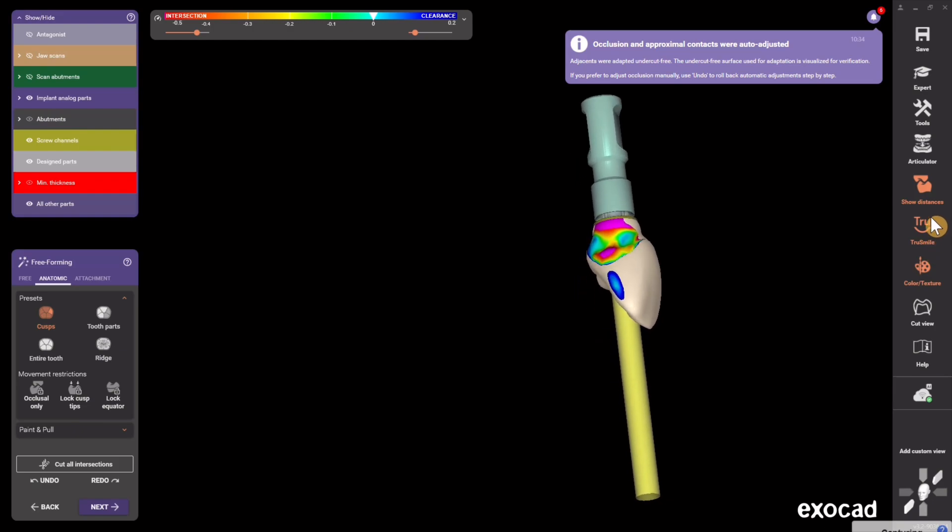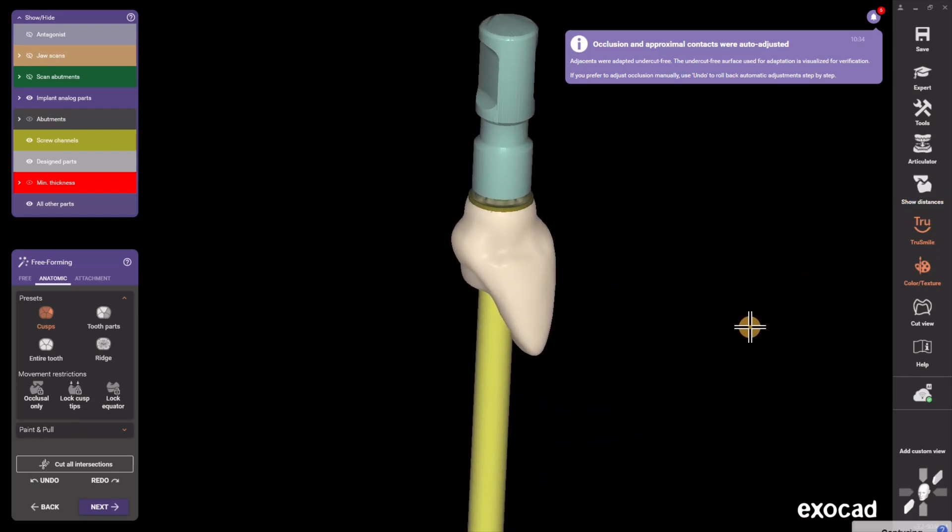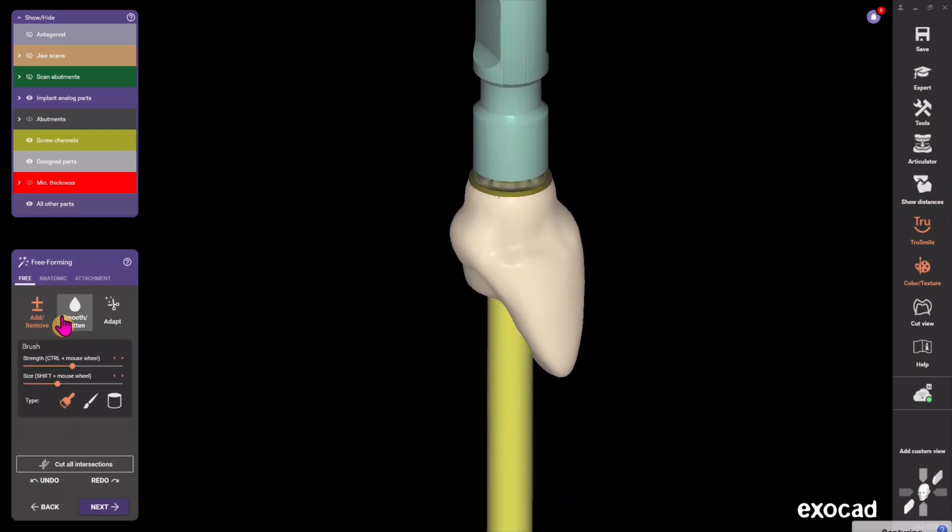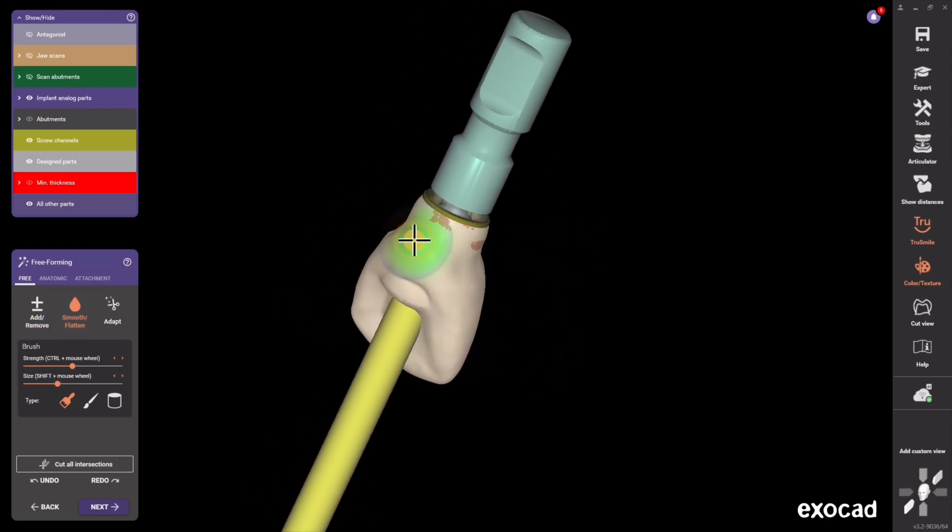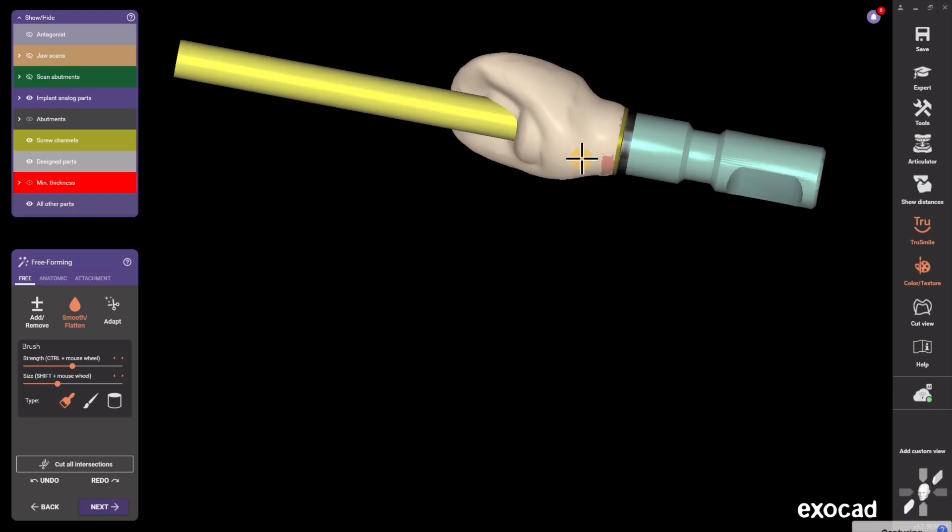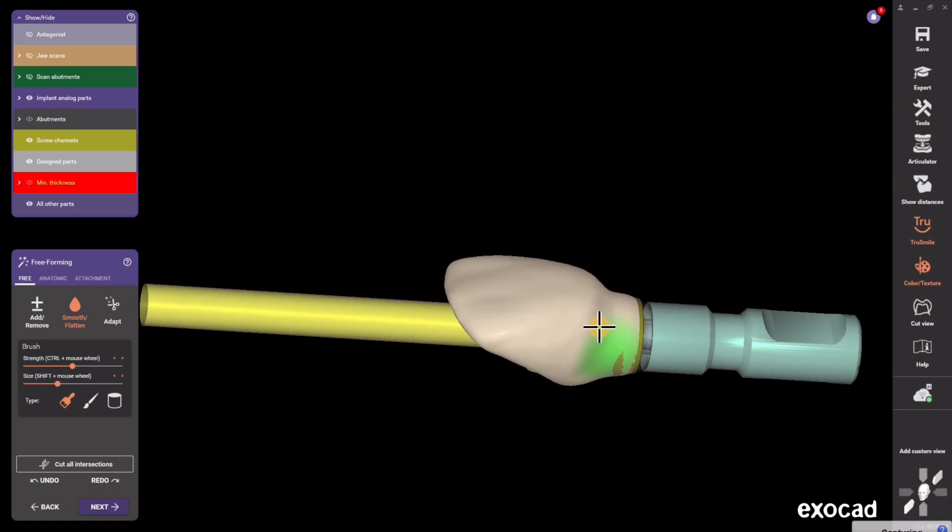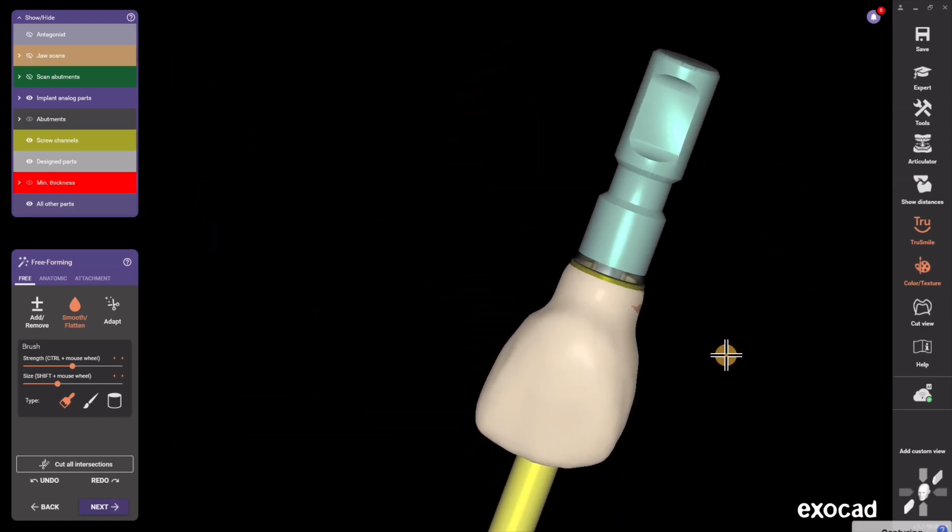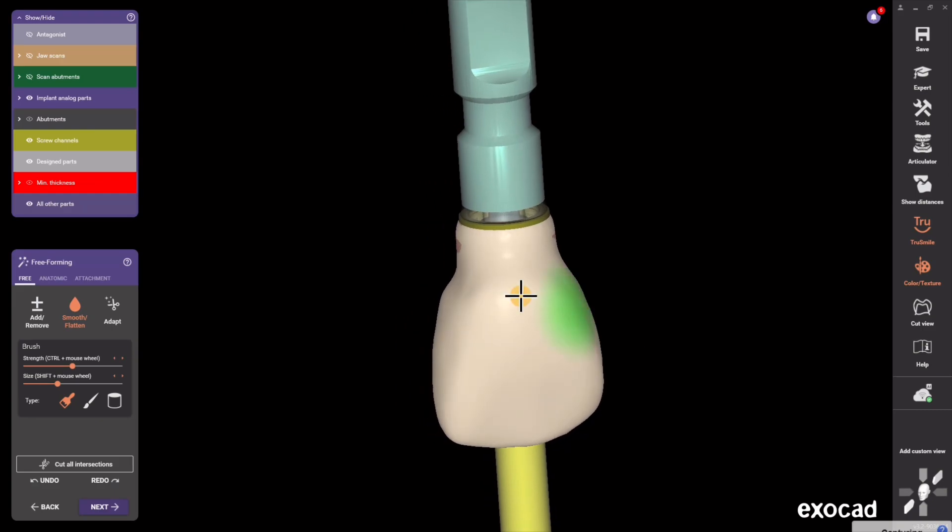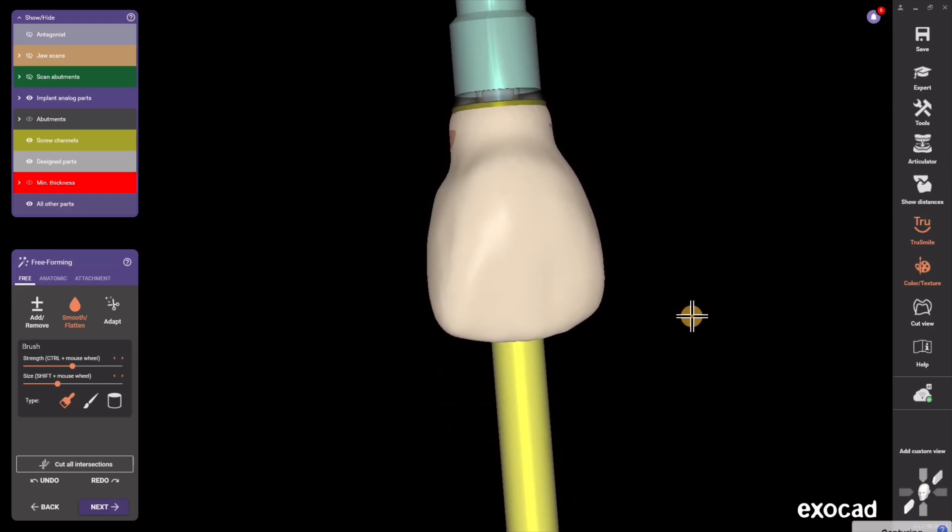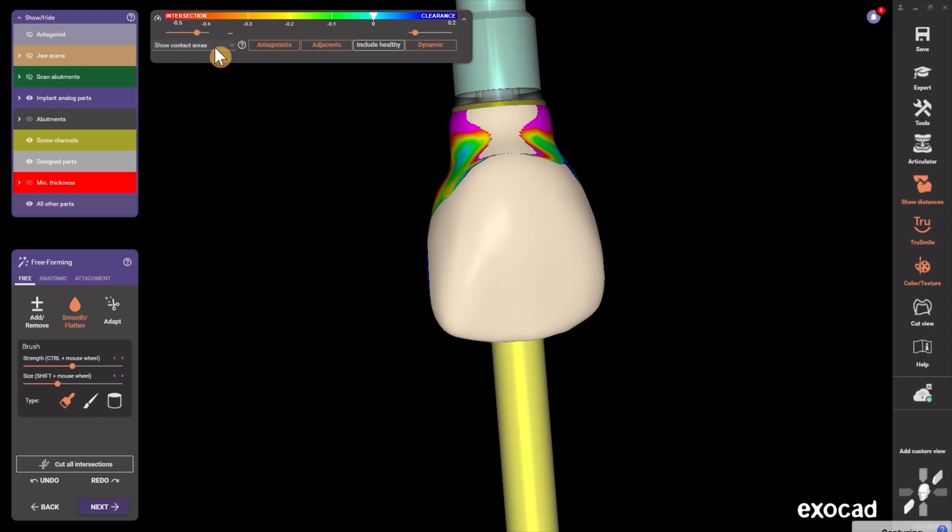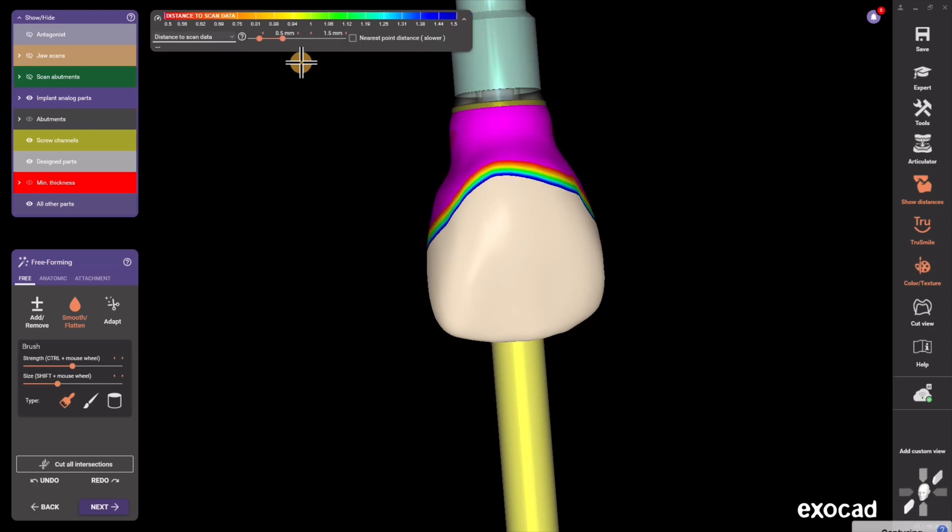I'm just going to remove the scan and look at the tissue pressure and smooth using my smooth tool any little areas that I want in my subcritical contour area to determine tissue pressure. This is also an area where you can modify tissue pressure where you could cause the gingiva to relax and come incisally, or you could put high pressure and have it come apically, and this is where I look at distance to scan data.